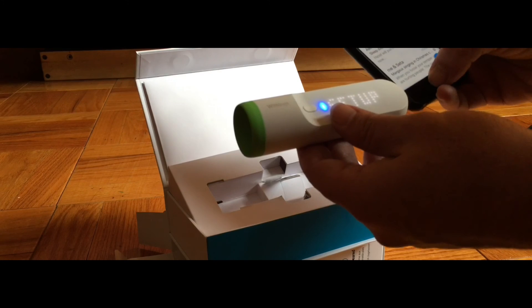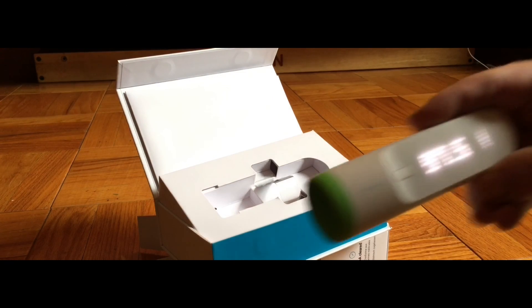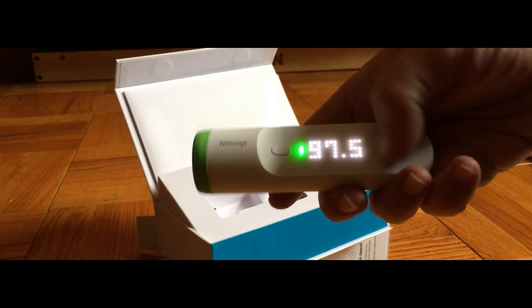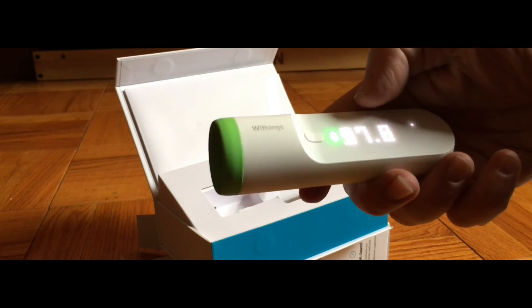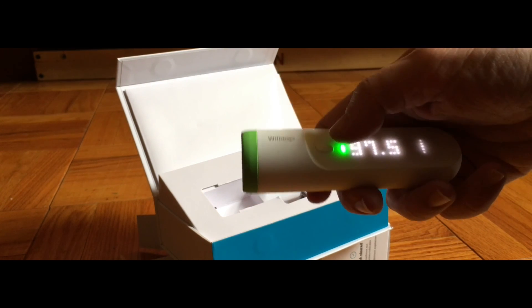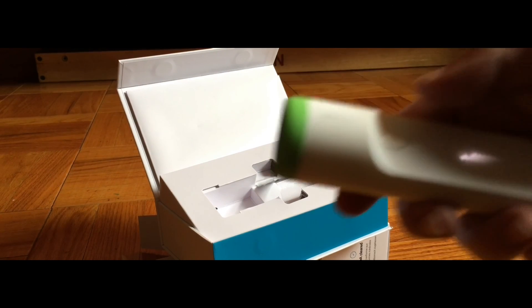One thing I don't like is that instead of using the generic Withings app that comes on iOS, Withings released this with its own dedicated app called Thermo. The data goes into this Thermo app, and if a reading isn't assigned to anyone in the Thermo app, you can assign it to someone there.